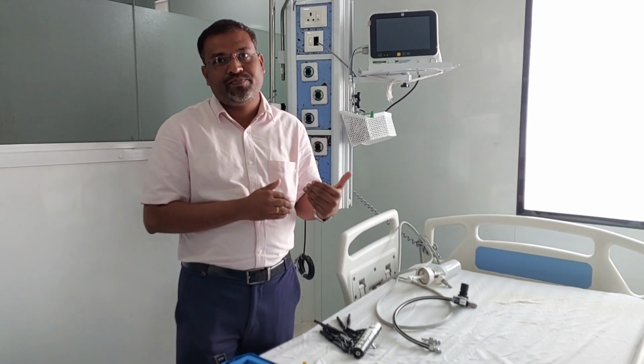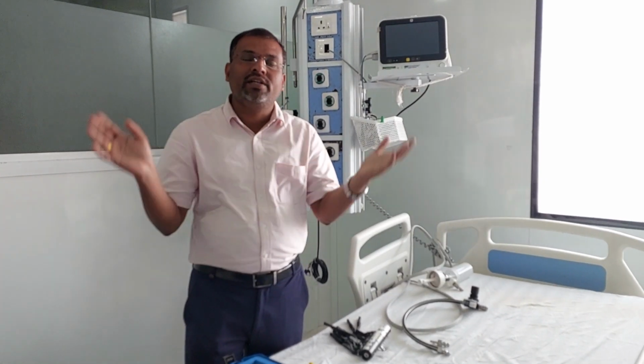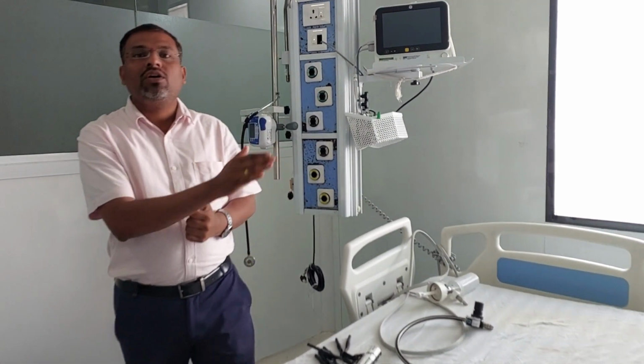In big hospitals, all these gases come through a copper pipeline, right? The length of that copper pipeline is very huge, in a hospital it is around kilometers, right? So sometimes, due to the long running of those gases, some contamination can be added in the pure oxygen or air, right? Such contamination is sometimes dangerous to the patient.